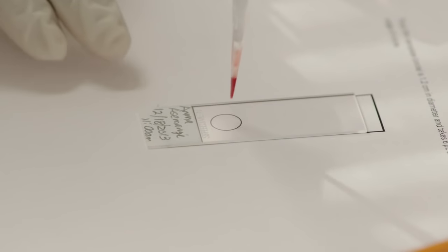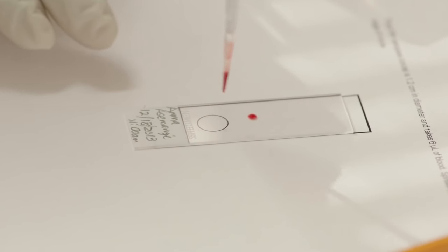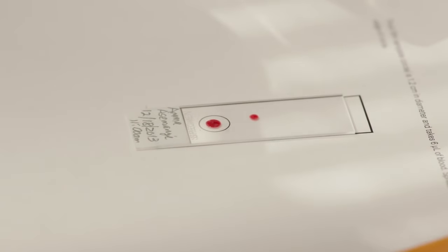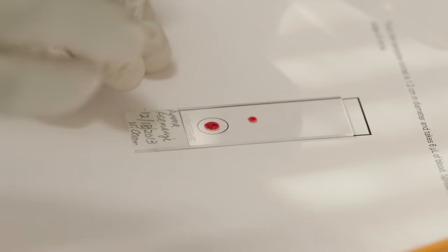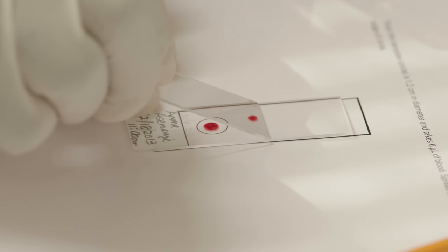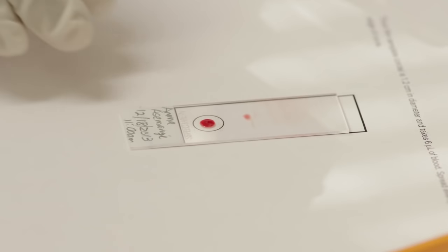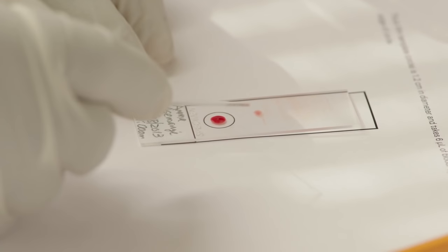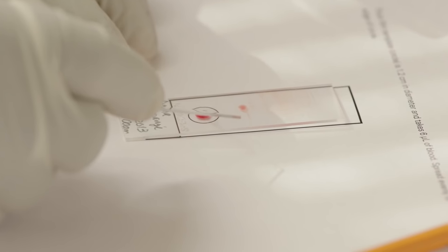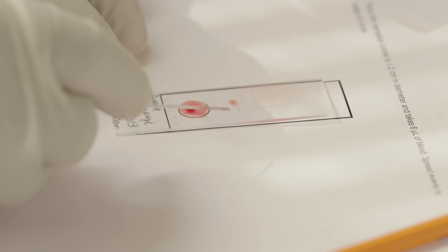I'm placing a drop of the blood here for the thin film, and then three drops of the blood for the thick film. I'm using the glass slide as a spreader to prepare the thin film. At an angle of 45 degrees, you prepare the thin film. And then you use the edge of the same slide to make the thick film.